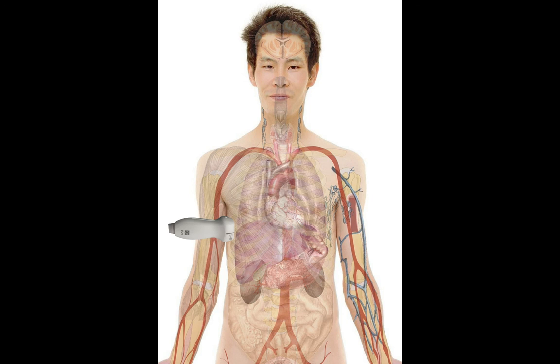Any other points to comment on? The main point to keep in mind is that this is a 2D image of a 3D structure. So you want to use multiple planes where possible to locate and identify structures appropriately, and to prevent complications from both your diagnostics and your procedural interventions. That's the closing of our Black Box Discussion.